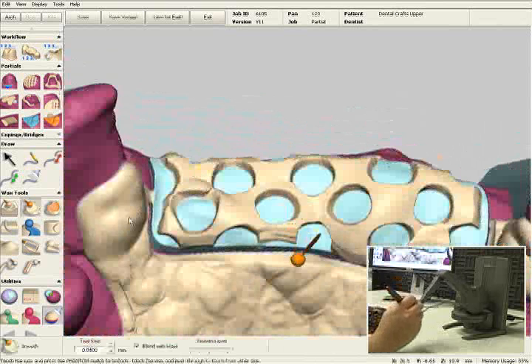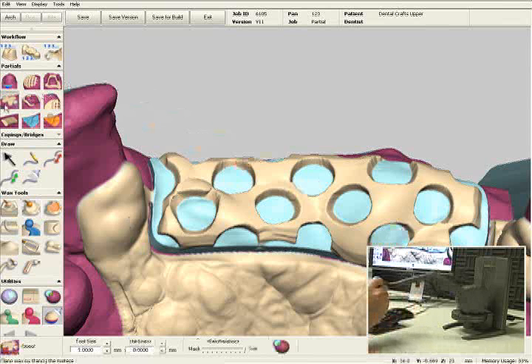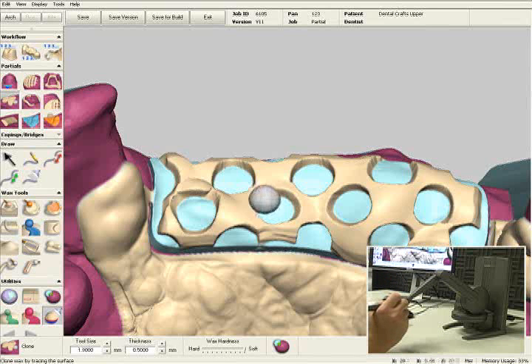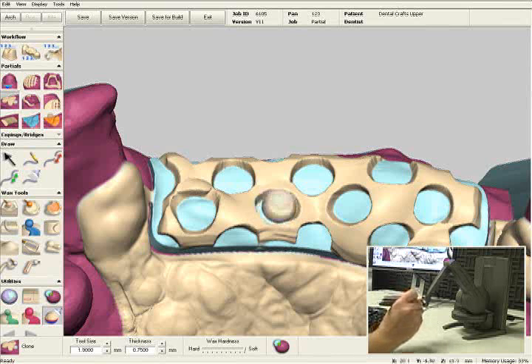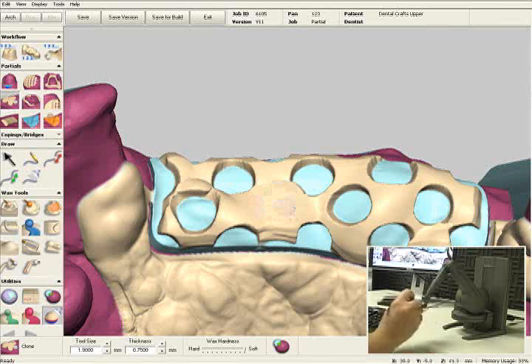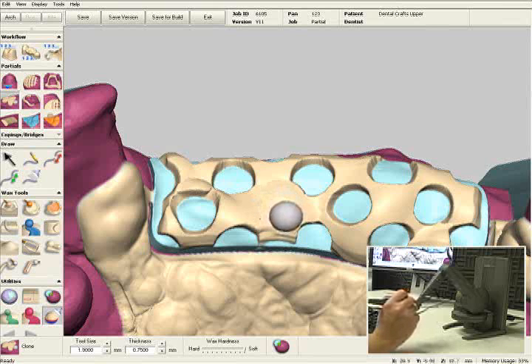Now I'd like to connect my anterior mesh to the major connector, so I'm going to select a tool called the Clone tool and make it a little bit larger. I'll specify a thickness of three-quarters of a millimeter of wax. Now, as I try to add wax here, it doesn't get any thicker — and the reason is that this particular tool will only add wax to the digital refractory model or to the block out wax; it will not add wax to wax. So with this tool you can guarantee a consistent thickness throughout your design.